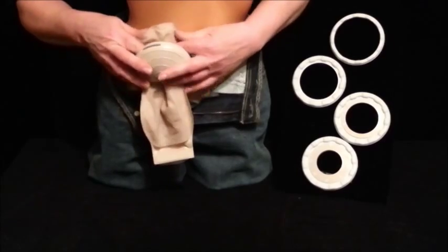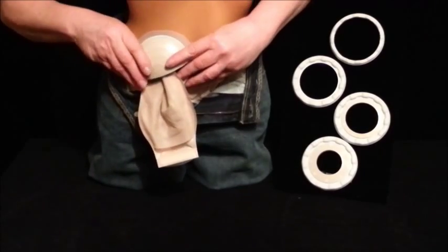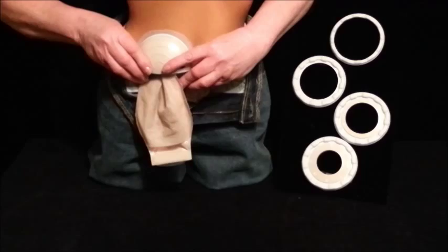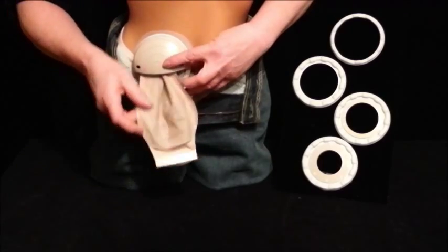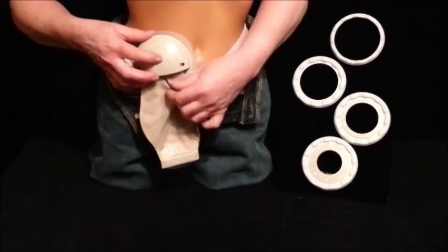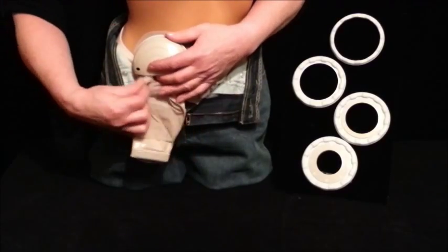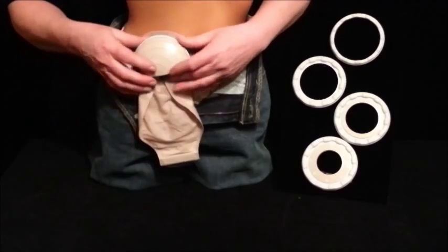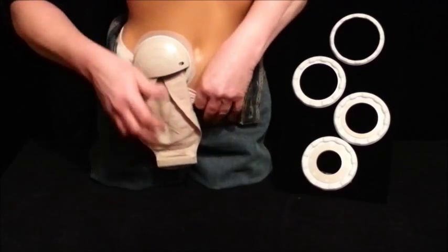This prevents gas from ballooning the pouch above the waistband of your jeans or slacks. I sometimes fold the pouch neatly in place, but truthfully the heavy weight of jeans material is sufficient to hide any wrinkles in the pouch.